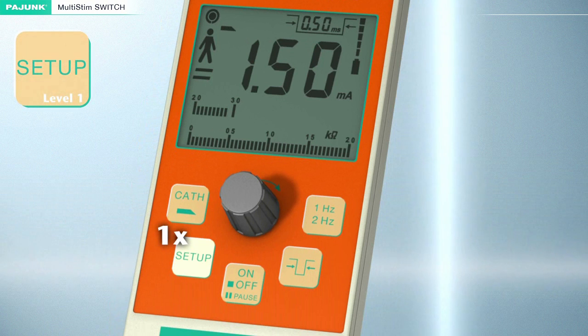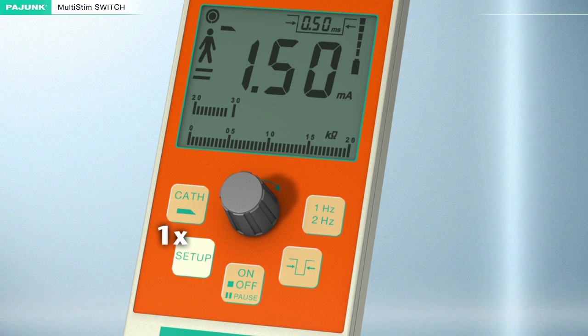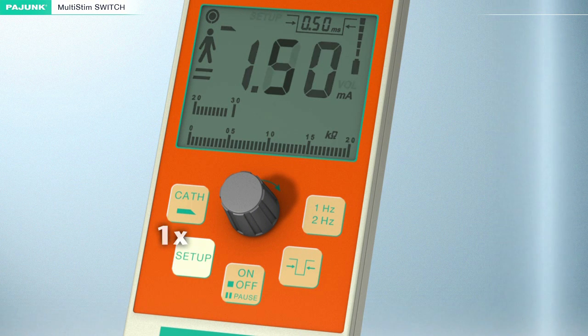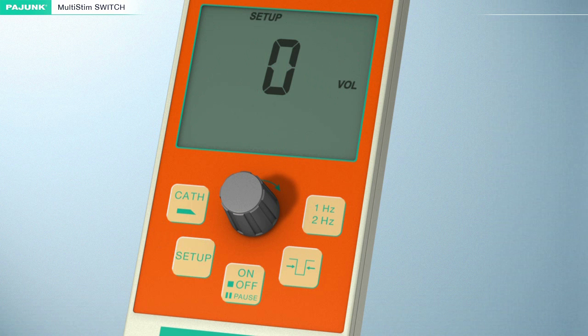Setup. Various program options can be defined by pressing the setup button.